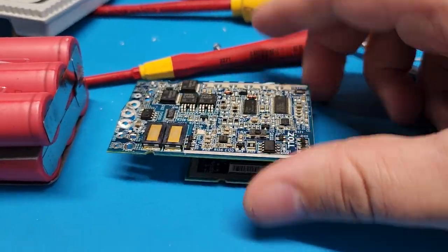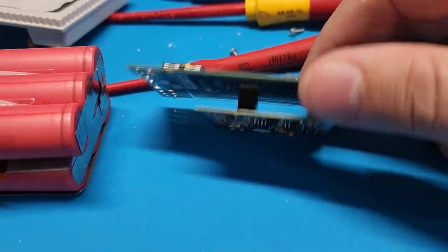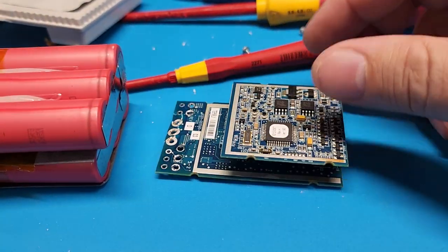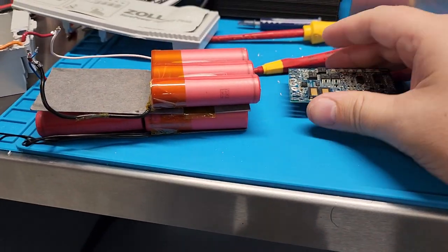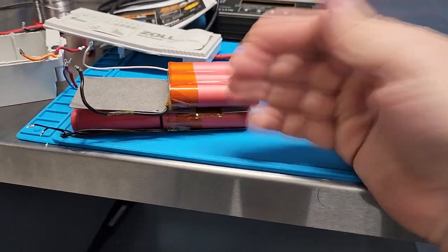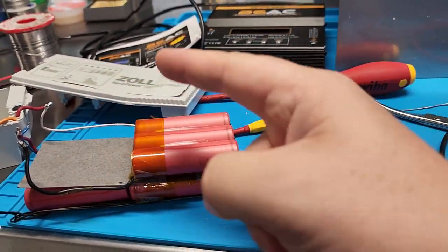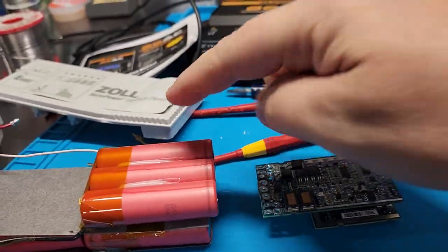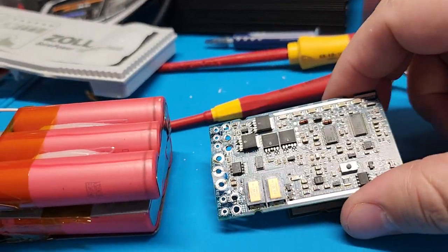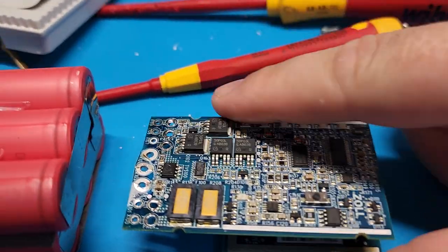For me it was nothing at all. This battery has never been used — it was on a shelf waiting to be sold. It turns out this circuit acts like a battery depletion circuit, continuing to run until it drains the battery completely, at which point the voltage is well below the charger's threshold and it just registers red or nothing. Let's take a look at the button that activates the battery charge detection.